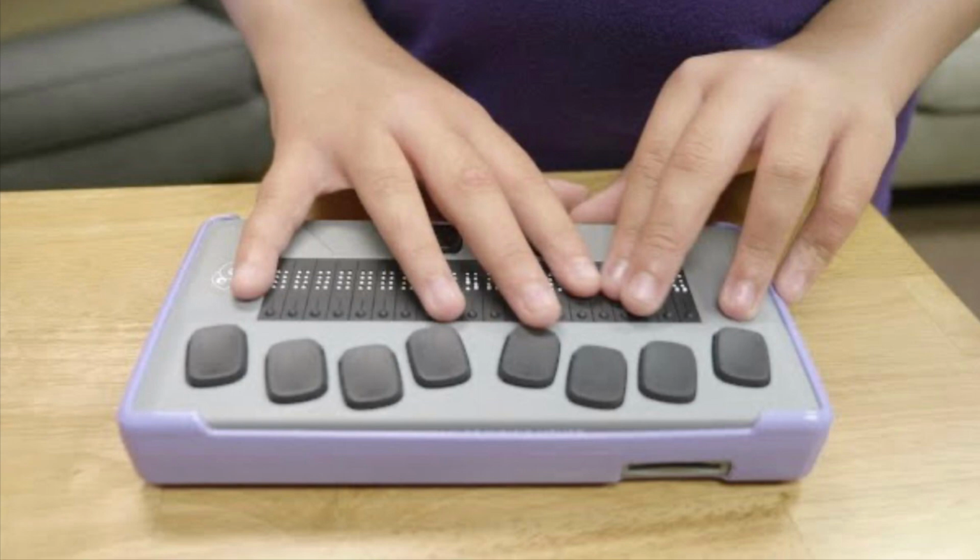Battery low, 5%. Battery low, 5%. Read mode set. Now I am going to do the X again to turn it back to standard edit mode. Edit mode set.